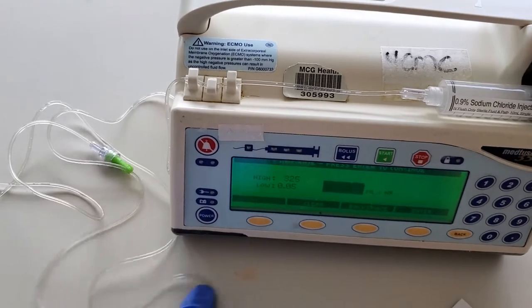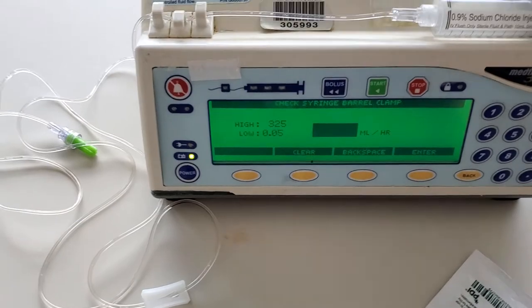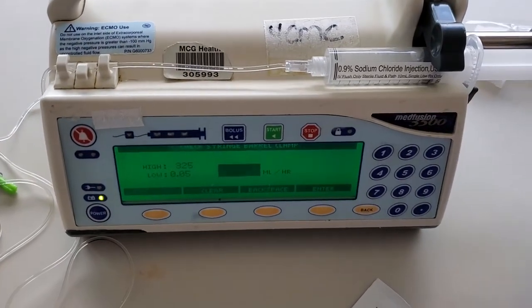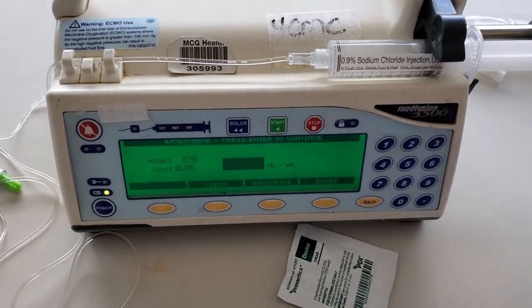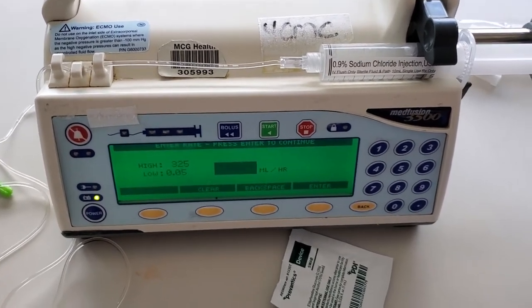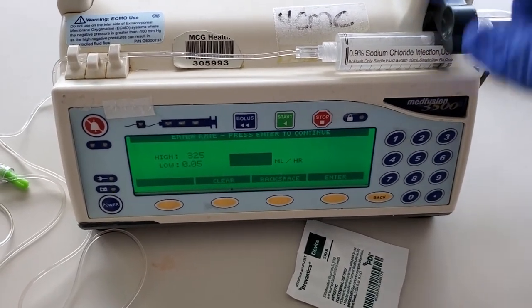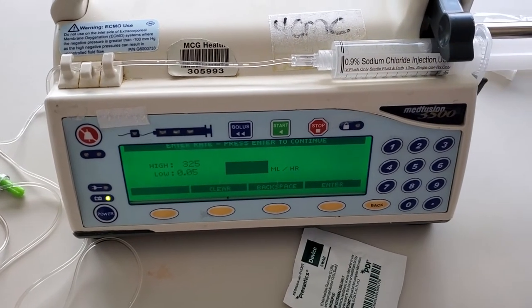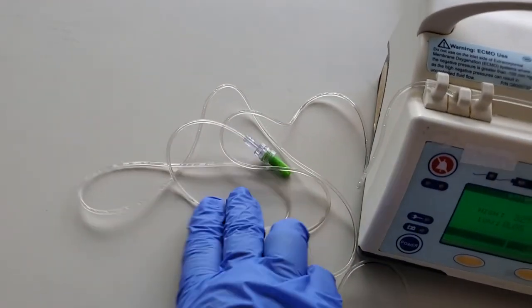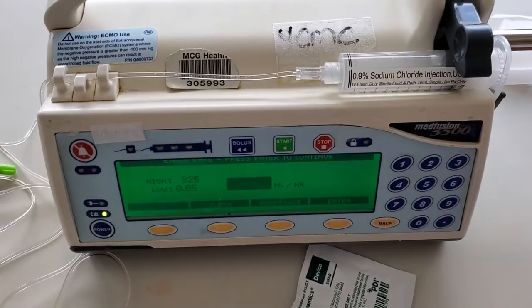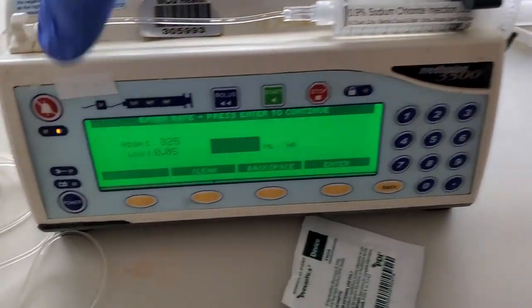I need at least 10.5 to give my medication. However, most IVs have an extension set on it, and it takes about one ml to flush the extension set. So if I'm giving my patient 10 ml of, let's say, ampicillin, then I need to add another 1.5 to completely flush all of the tubing here and flush the extension set on my patient's IV. So I'm going to set my dose as a total dose of 11.5 ccs.